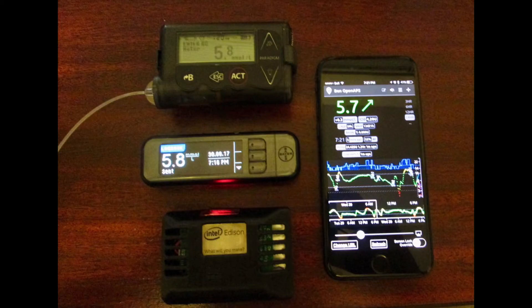You can see on my phone I have the NightScout app, and that is just a visualization tool so I can see what my blood sugars are and what my temporary basals are being set at. The blue line at the top is the temporary basals being set — if my blood sugar is going down you can see the blue line kind of flat lines, and if they're going up it increases the basal delivery and tries to bring me back down to a normal range.